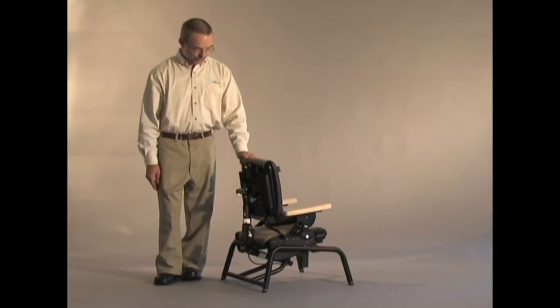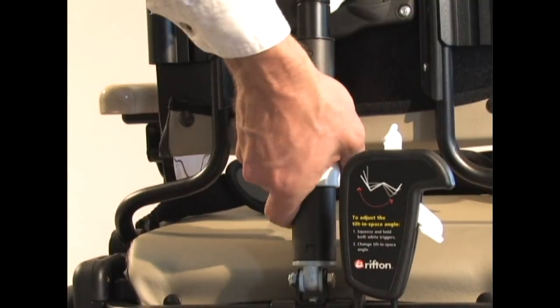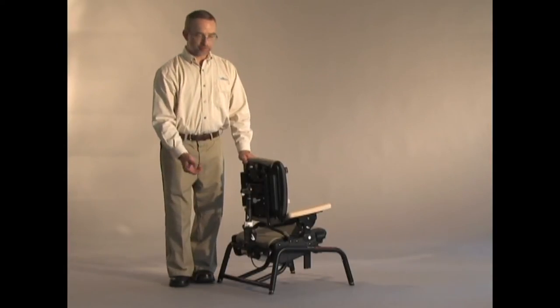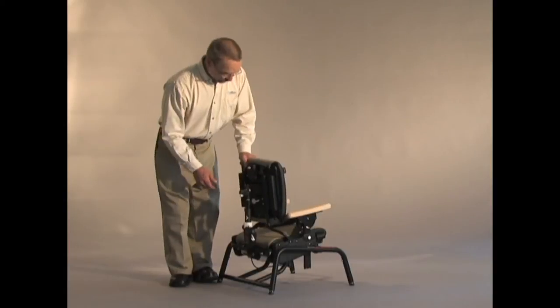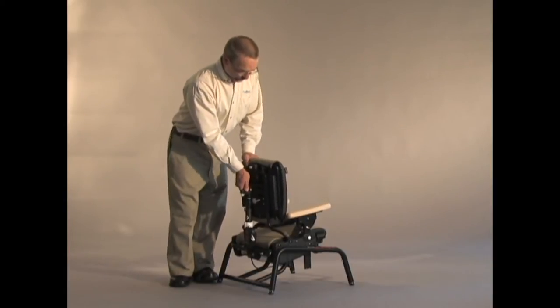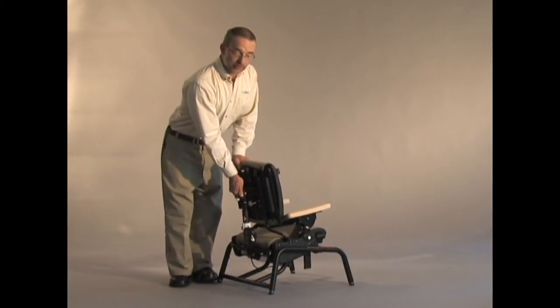We have provided a feature for that. If I turn this white handle, I now am enabling a compression spring, which gives me a full ten degrees of flexion that the child can bounce against.